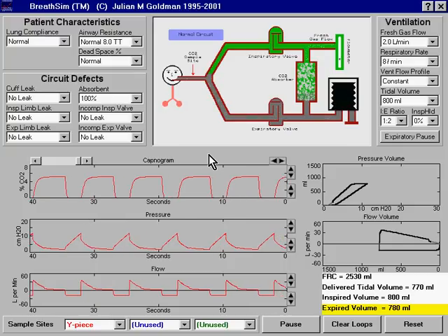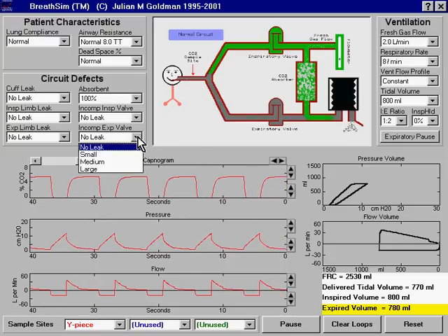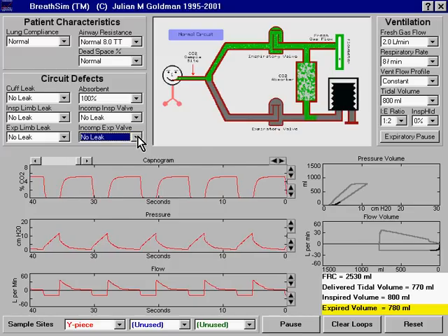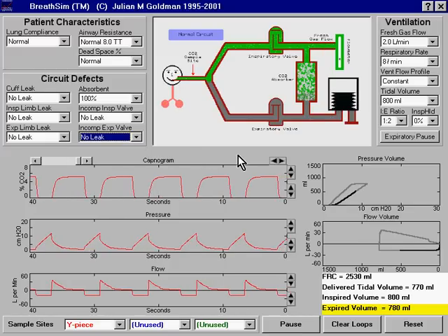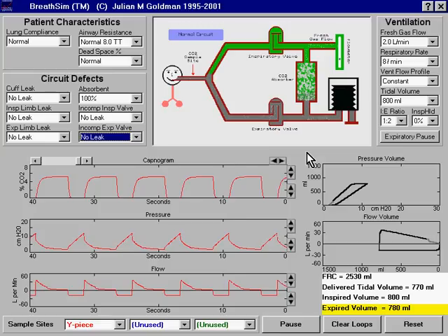It isn't difficult to anticipate the abnormality that results from an incompetent expiratory valve. But before we produce that abnormality, let's take another look at the flow of gas as it exits the ventilator bellows.